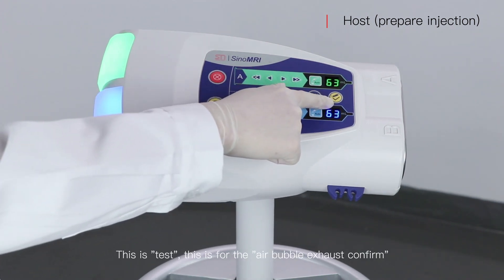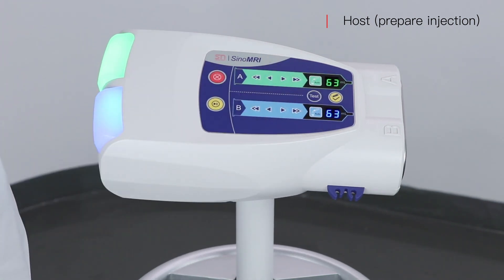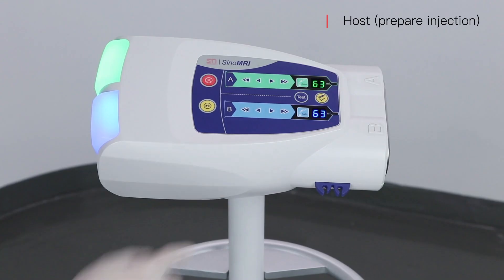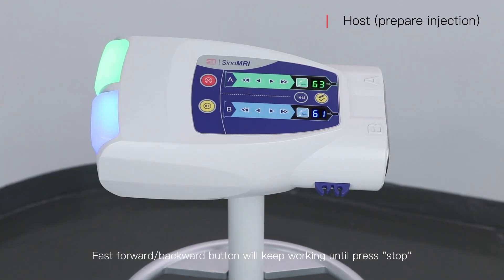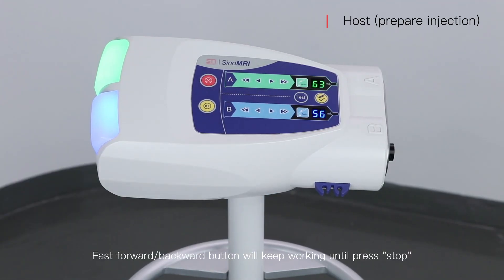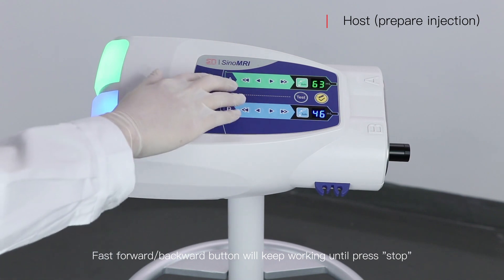This button is for the air bubble exhaust confirm. The fast forward and backward buttons will keep working until you press stop.